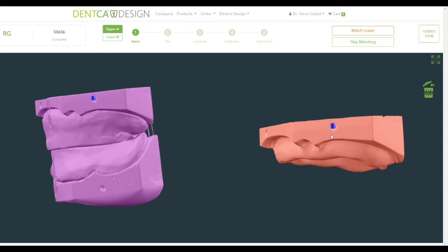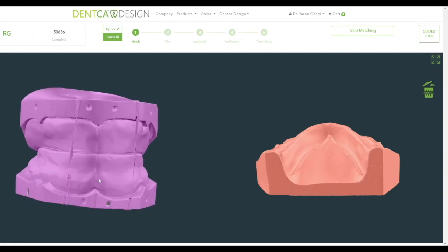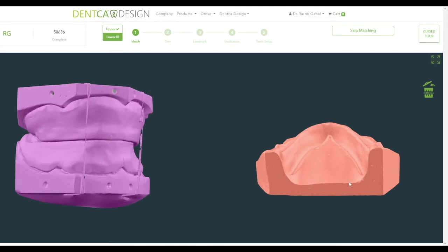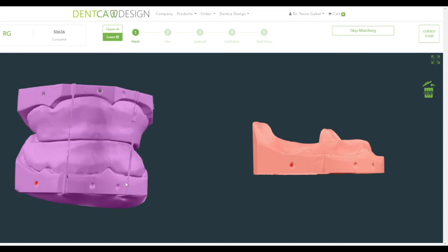If a point is misplaced, you can select it by pressing the Ctrl key and left-clicking on the point, or double-clicking on the point and then dragging it to its correct position. You can delete it by Ctrl-clicking on it and then pressing the Delete button on your keyboard. To add a new point if deleted, press Ctrl and then left-click on the desired area. Should you wish to reset all your points, click on the Clear All button on the right. You can also expand the screen by clicking on the four arrow icon on the right side and return to normal by pressing the Escape key.